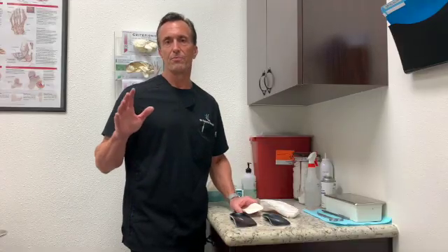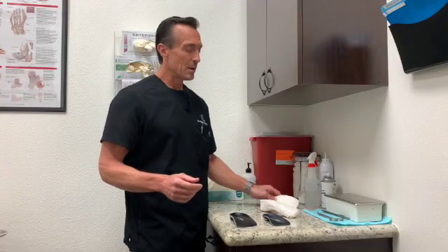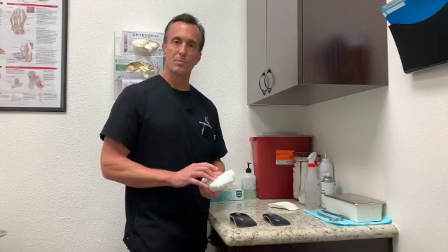Hi, this is Dr. Moore and today we're going to talk about orthotics. Traditionally there are only two categories: temporary versus a more permanent custom-molded orthotic. The temporary ones are made out of different materials, usually mold to the foot over time. They have a limited time span but do a great job, but most patients want the endgame, which is a custom-molded permanent orthotic. I like to use the plaster molding technique.